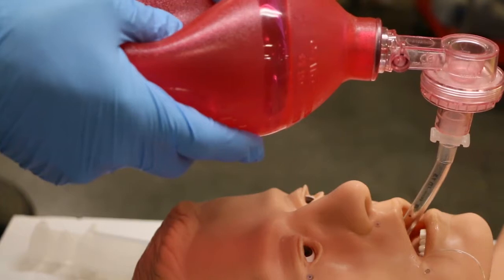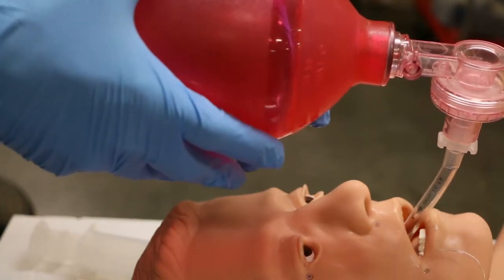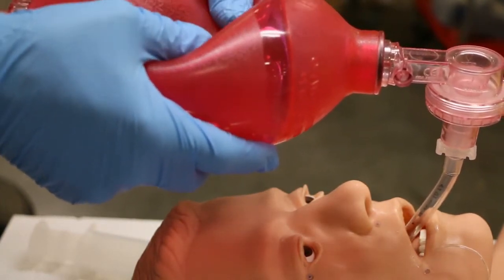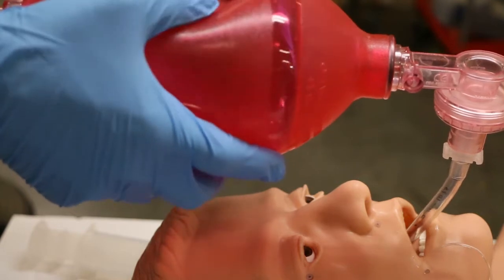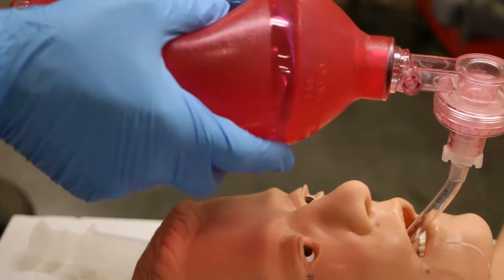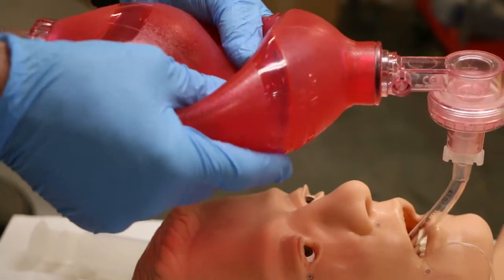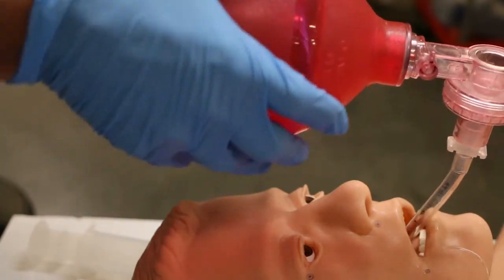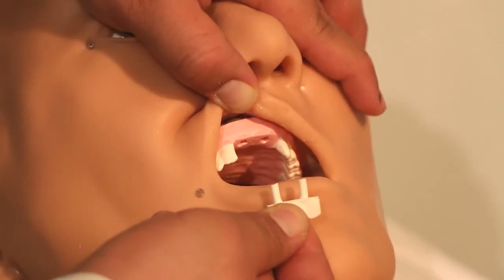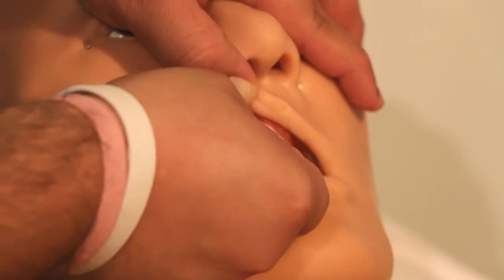Oral and nasal intubation. The head is built around a unified airway with a controllable tongue and laryngeal edema to complicate airway management. Breakaway teeth to train better blade technique.